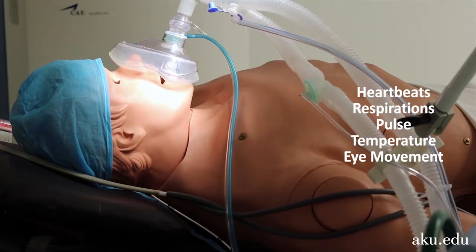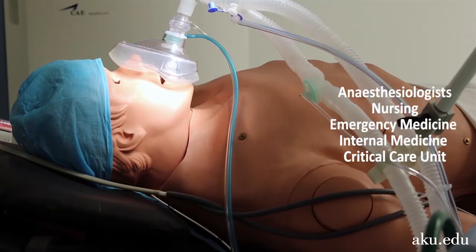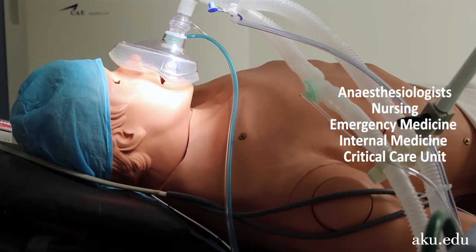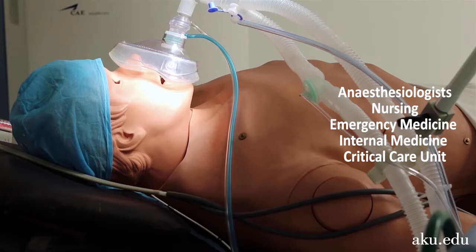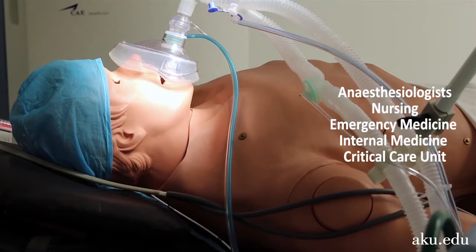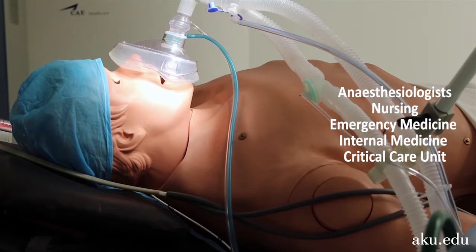Several medical professionals from various fields, such as anesthesiologists, nursing professionals, emergency medicine professionals, internal medicine professionals, and critical care unit technologists, utilize the HPS to enhance their skills and prepare for real-life scenarios.